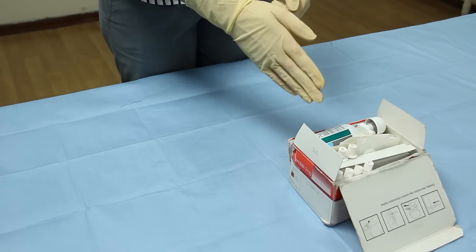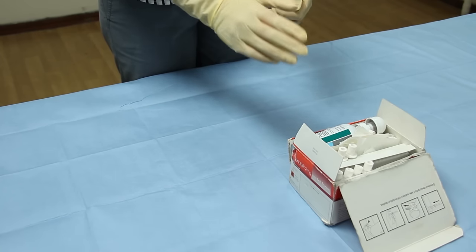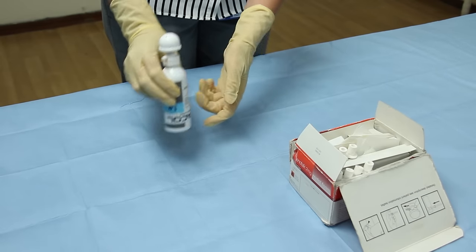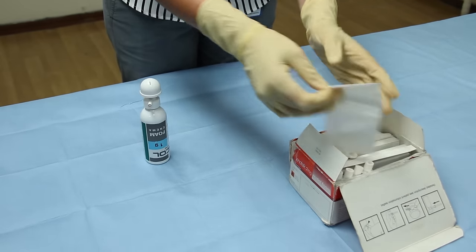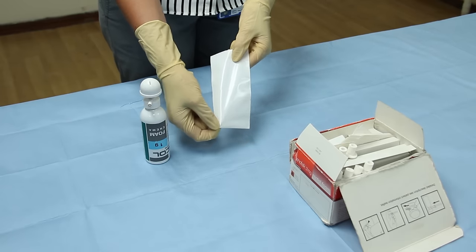They contain 14 disposable applicators, the rectal foam itself, and 14 disposable bags like this to put the nozzle in at the end.